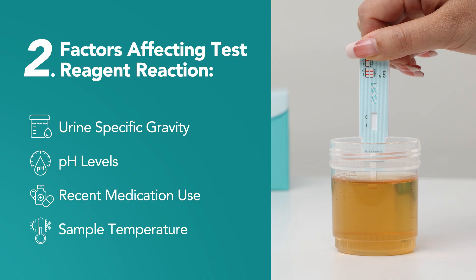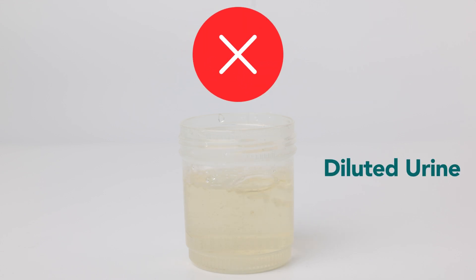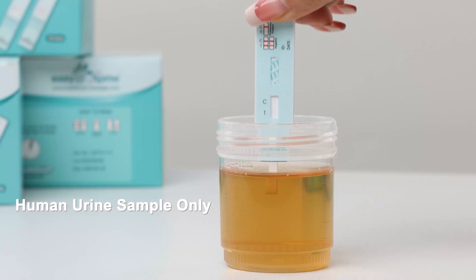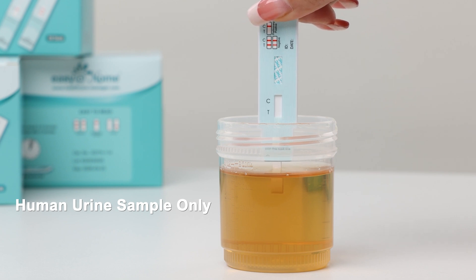Second: factors affecting the test reagent. Several factors can influence the test reagent's reaction, leading to a faint test line. These include urine specific gravity — diluted urine can lower the substance concentration, resulting in a fainter line — pH levels, where a sample pH outside the normal range can affect the test's reactivity, recent medication use, as some medications can interfere with results, and sample temperature — always use a fresh human urine sample, and perform the test at room temperature.